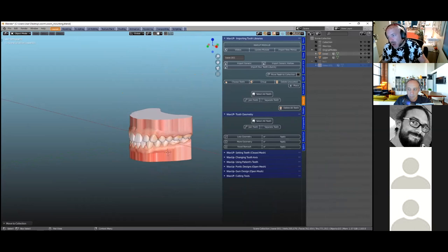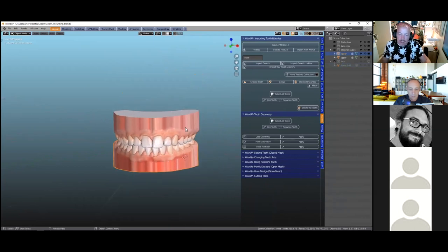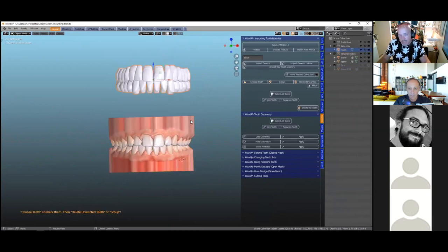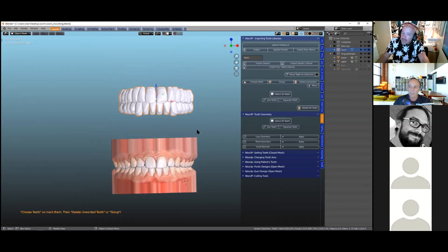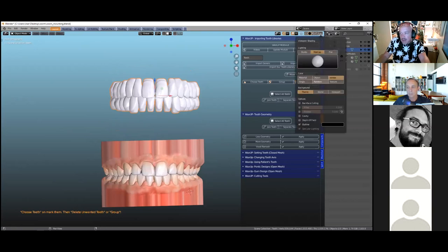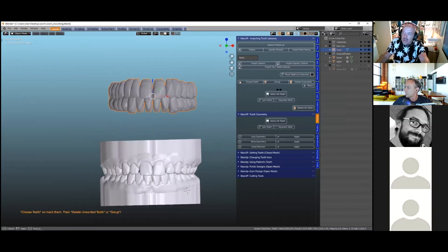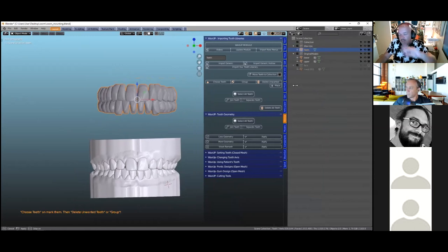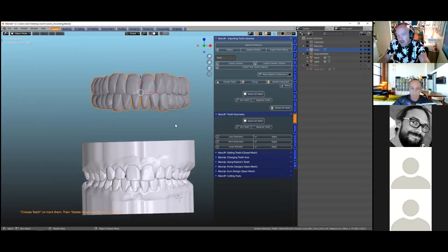We need to use the outliner window properly. We have specific tutorials on that. Now we'll import a generic tooth library. In vertex color mode we can see the biological colors — I'll switch to texture and these turn gray, notifying the user they've been placed into a collection called 'wax up'. If you're importing a different tooth library, first move the teeth into this collection and give them the name 'teeth' — everything works by names in the scripting.